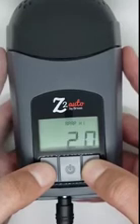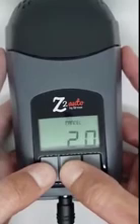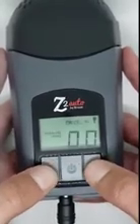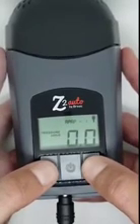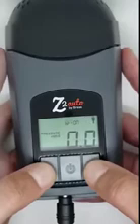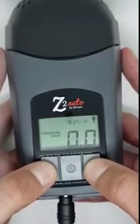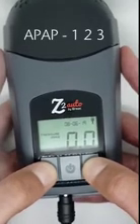If you need to change to CPAP mode, you hit the power button once to cancel the high pressure and a second time to cancel the low. This will bring you back to the 0.0 screen. From here, to change to CPAP mode, press and hold the up and down arrows at the same time until APAP- and a number flashes on the screen.